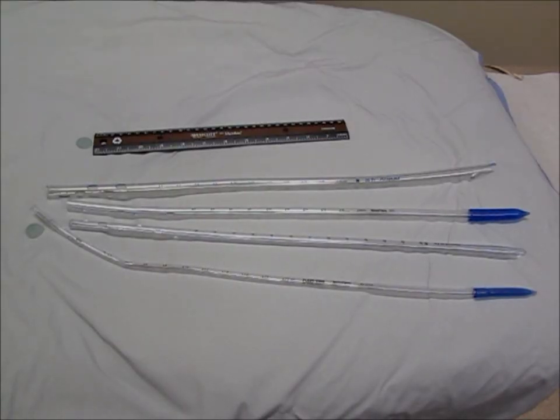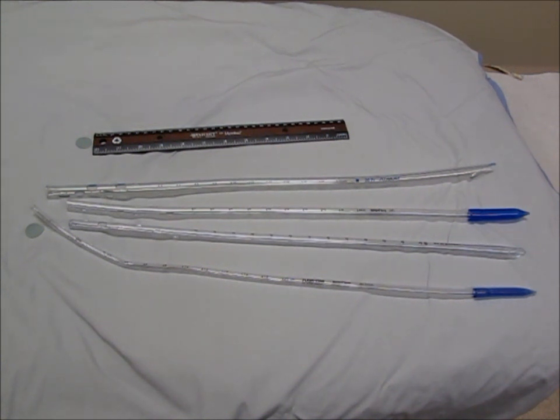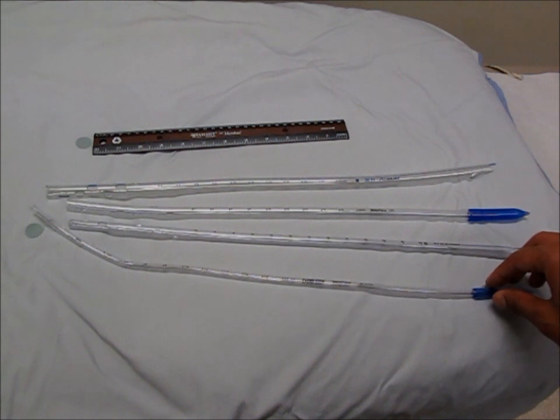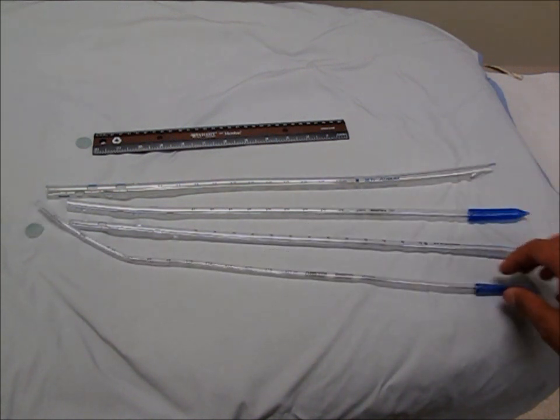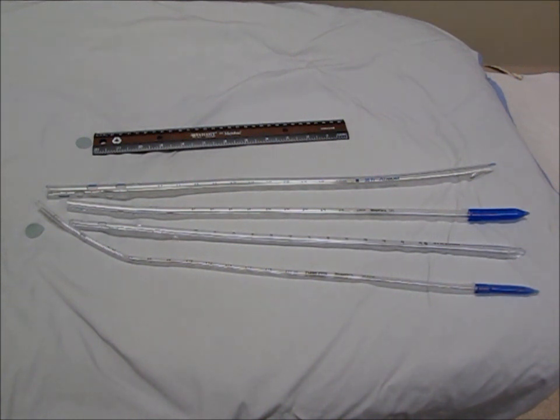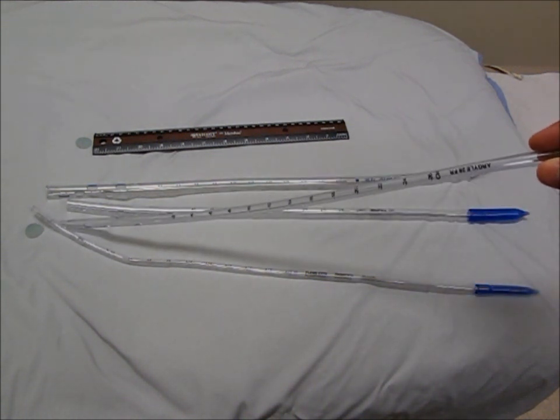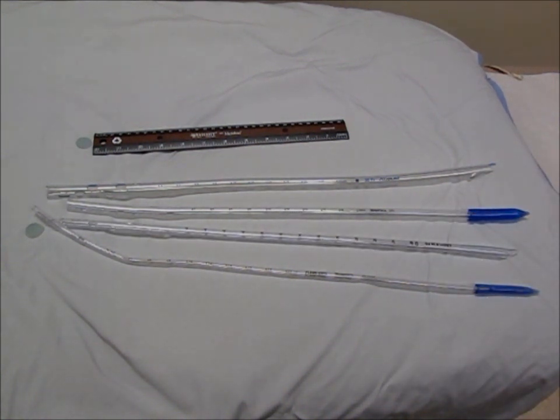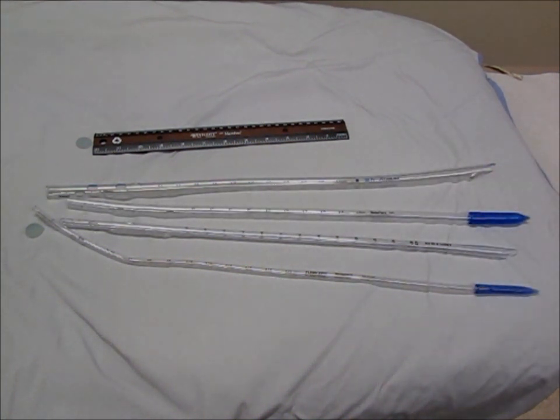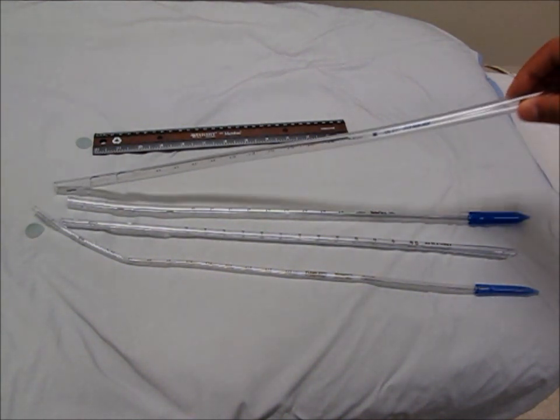The size of a chest tube depends upon the indication for the chest tube in the first place. In a pneumothorax, where the chest tube will serve as a conduit for air, a smaller chest tube may be used — for example, a 20 French chest tube. When draining fluid or even clots from the pleural space, a larger chest tube must be used. For example, in an empyema, a 28 French chest tube should be used. In a hemothorax, a 32 to 34 French chest tube should be used. In general, in a trauma setting, a 36 French or larger chest tube is recommended.